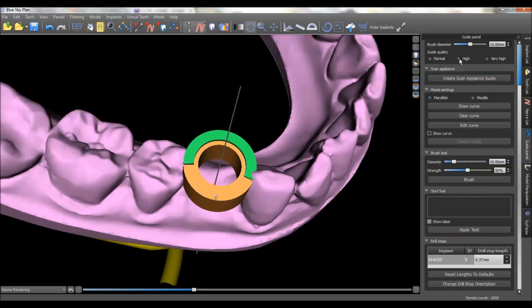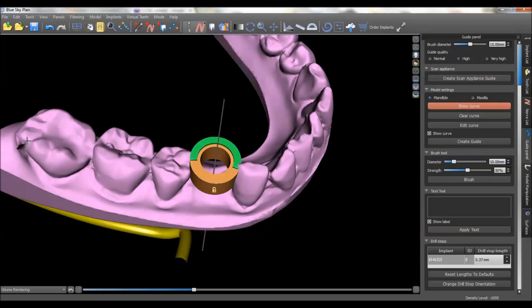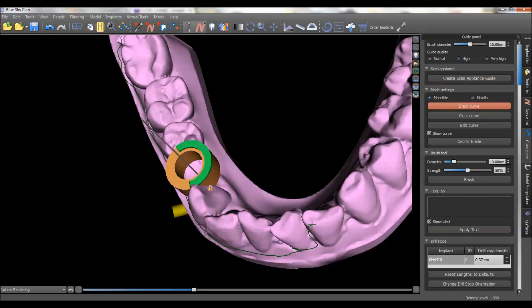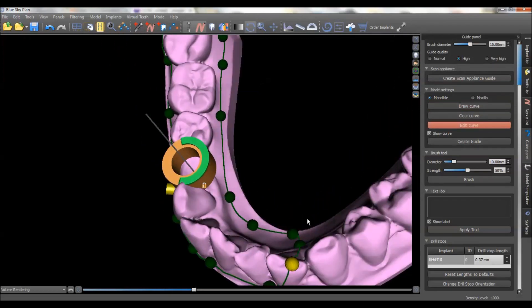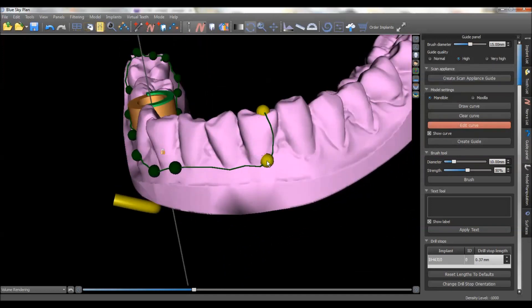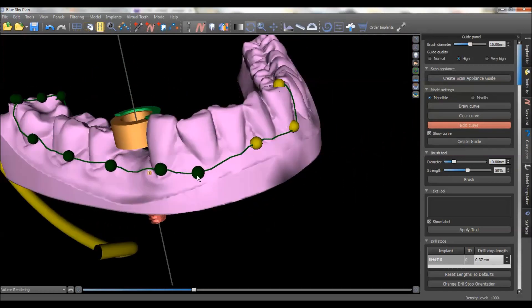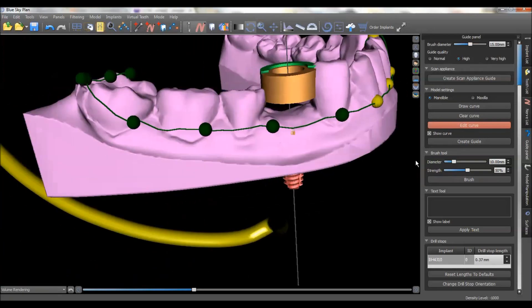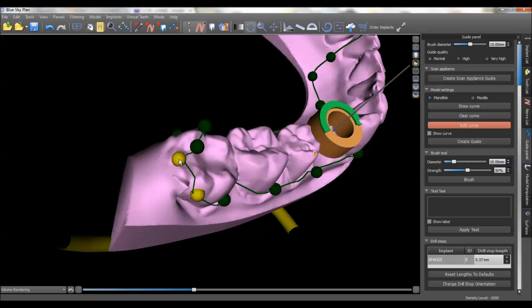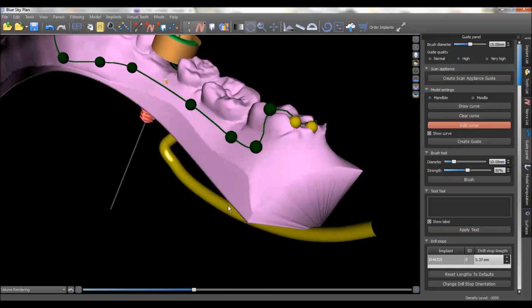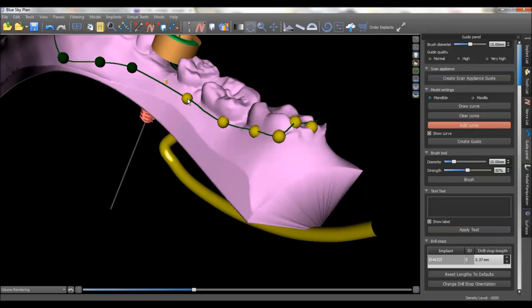Come to your guide panel, choose 'High' on guide quality, choose the arch you're working on, and then choose 'Draw Curve.' When you hit Draw Curve, hold down your Shift key — the arrow turns into a crosshair and we're going to draw the perimeter of our guide. I usually like to go from the most distal tooth up to a little past the midline. Now we'll hit 'Edit Curve' — it brings up all these little dots which you can adjust to fine tune the perimeter. I like to take this all the way to the bottom of the teeth because the software blocks out undercuts, so you don't have to worry about that. I like to get all that axial tooth surface to really stabilize the guide, adjusting it to about the gingival level.